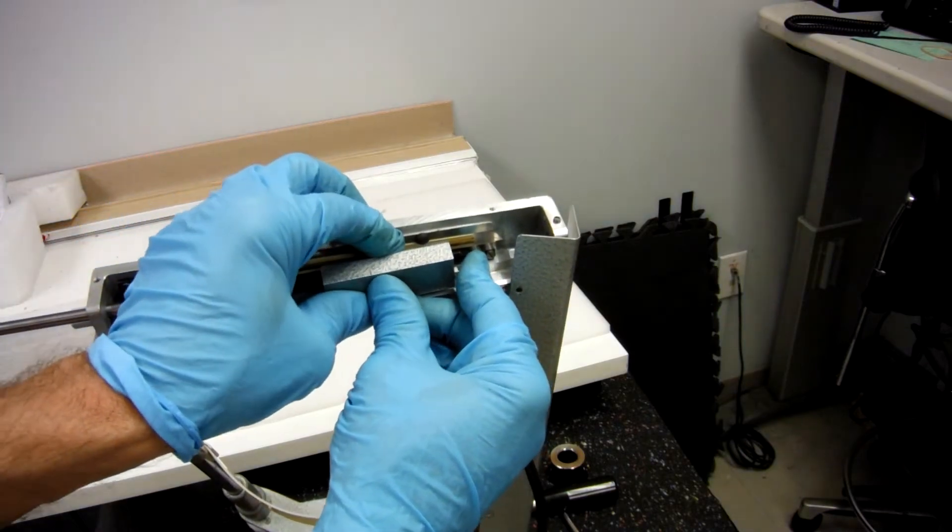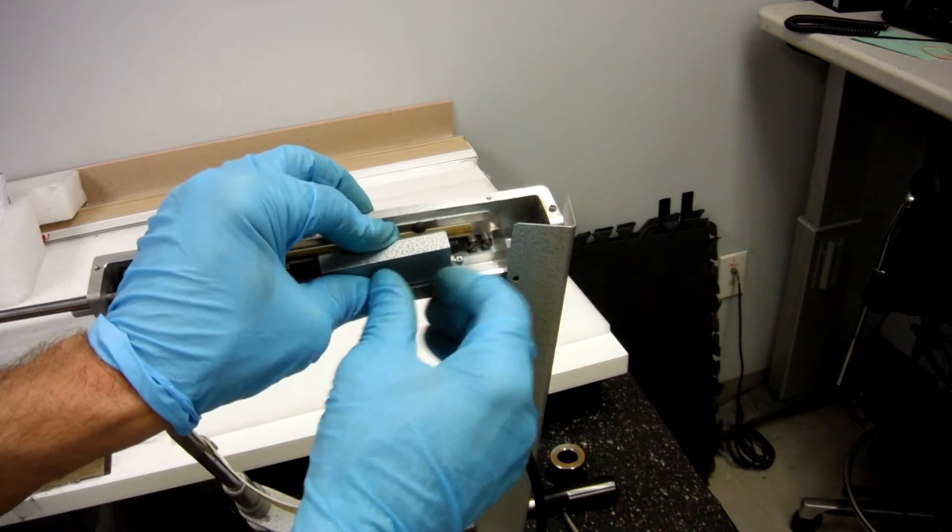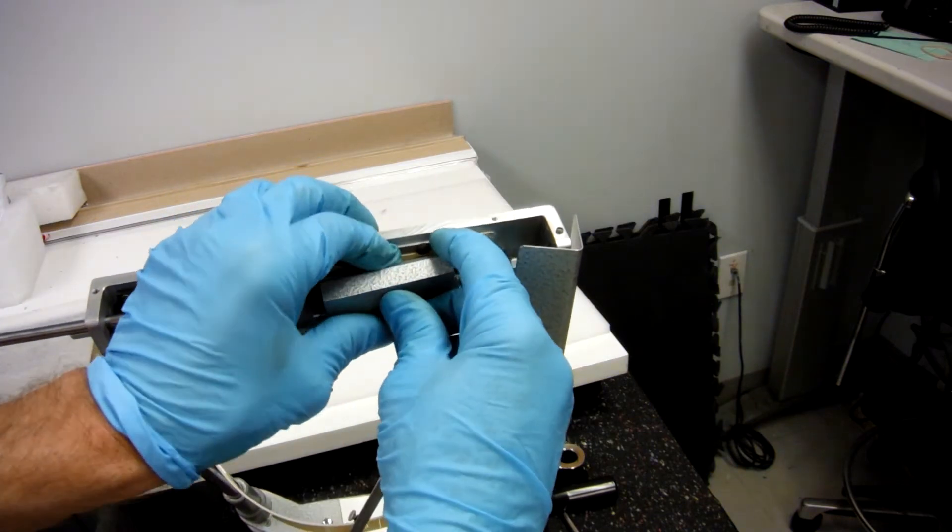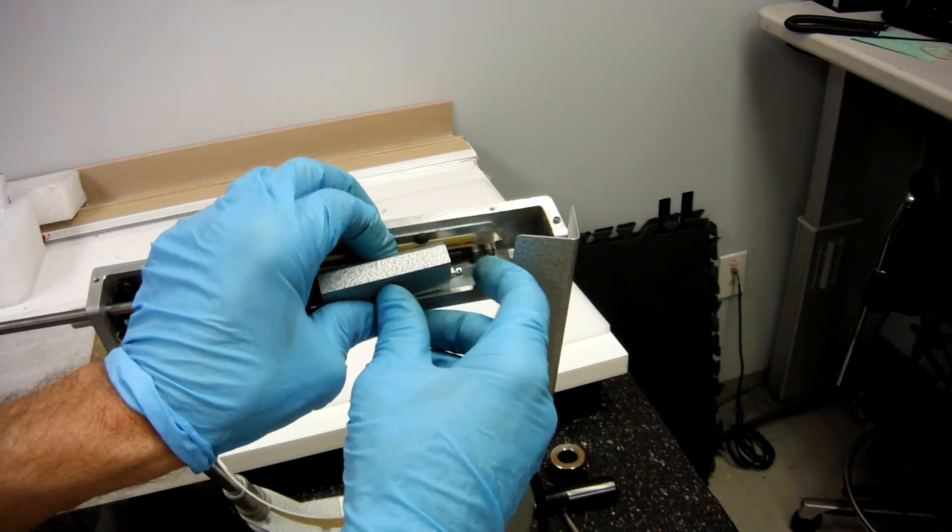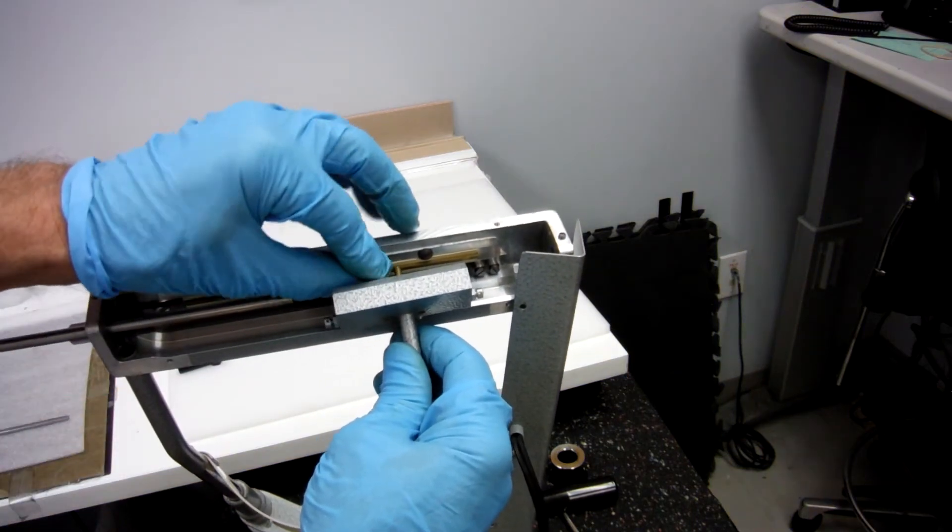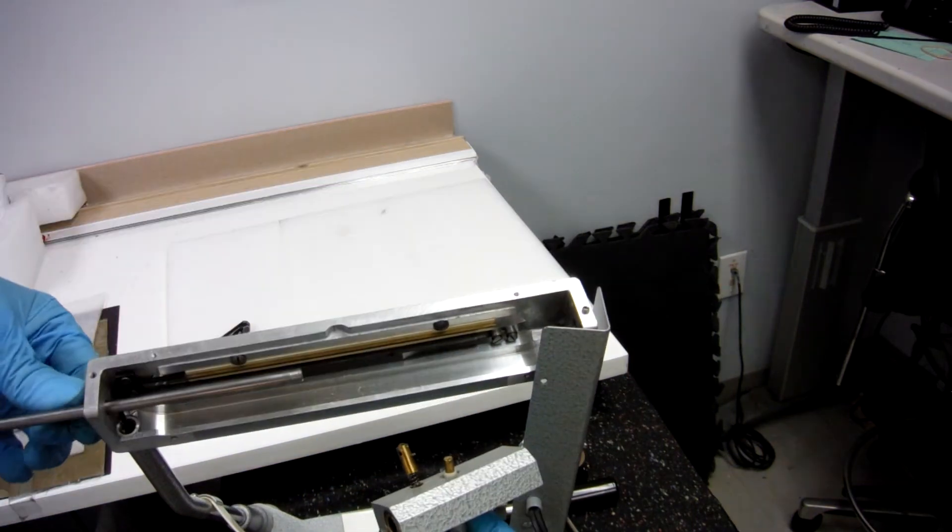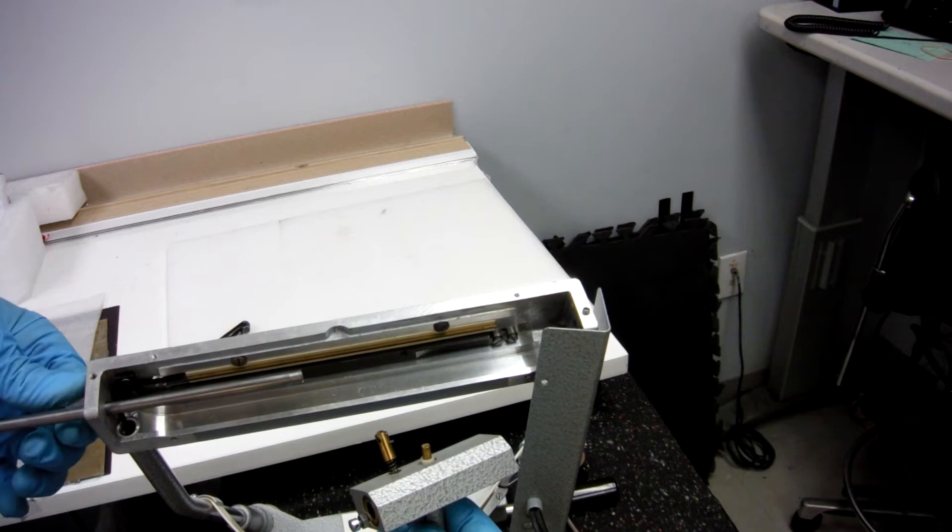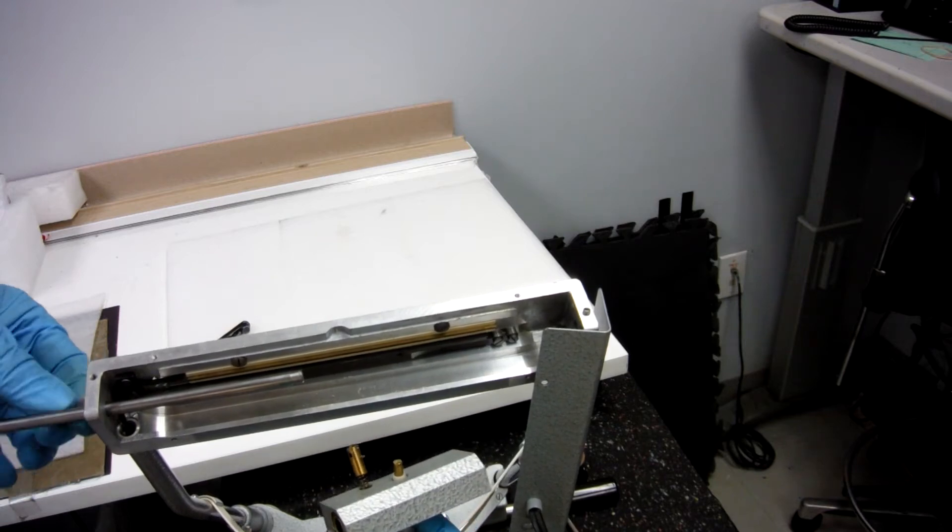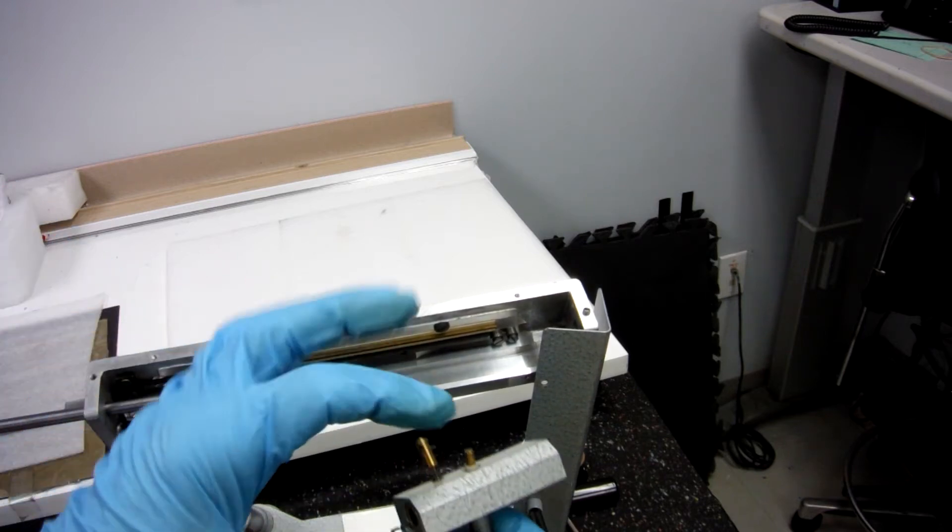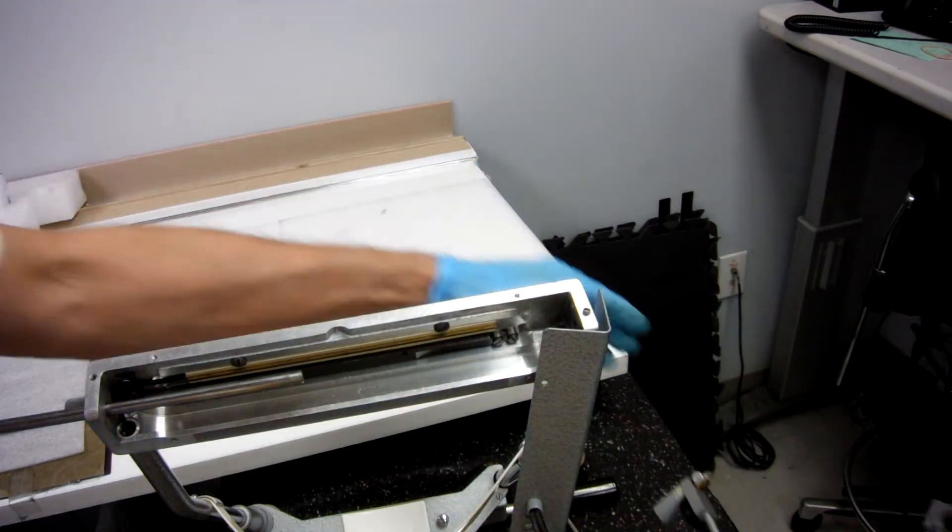In this carriage you have two springs and two contacts. One spring is for your hot voltage. The other spring and contact are for your carriage mover. We will take this completely out. We don't need it anymore.